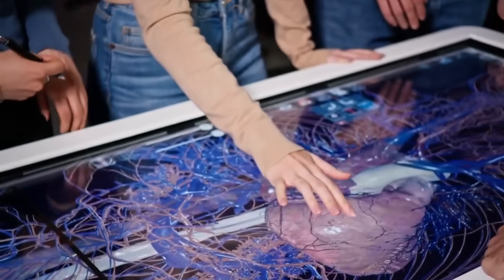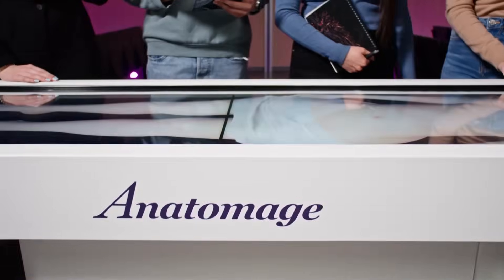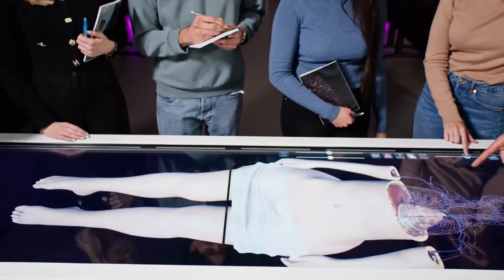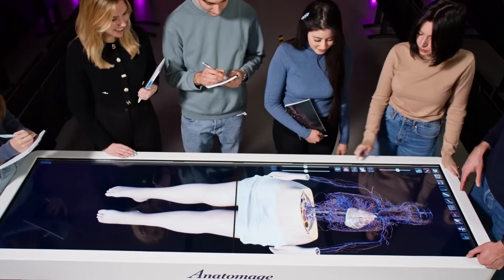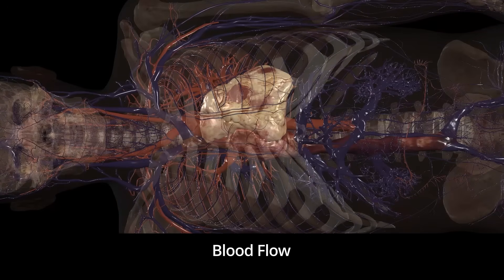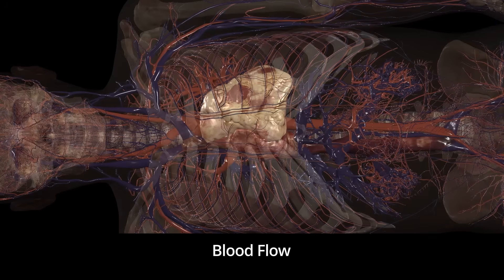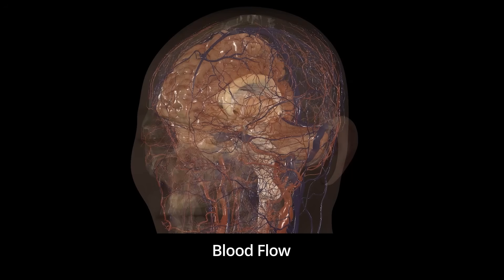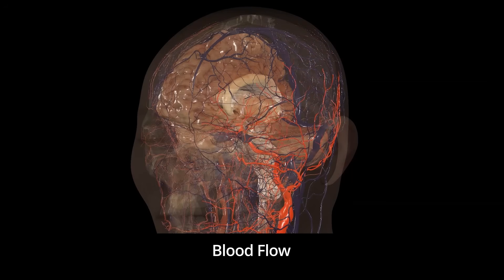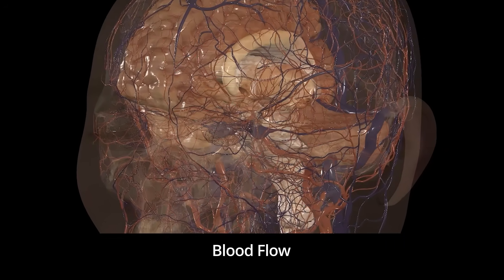Table 10 not only offers a detailed look at the intricacies of human bodies, but also enables collaborative lab activities that deliver authentic learning experiences to students. The latest enhancements to our Anatomage bodies include simulations such as detailed blood flow tools, including vascular grow, that simulate an intricate roadmap of vessels and their branches across the entire cadaver's body.